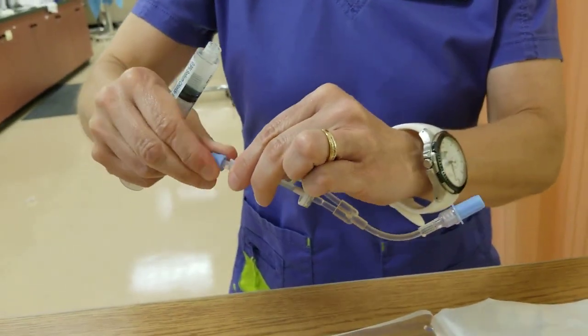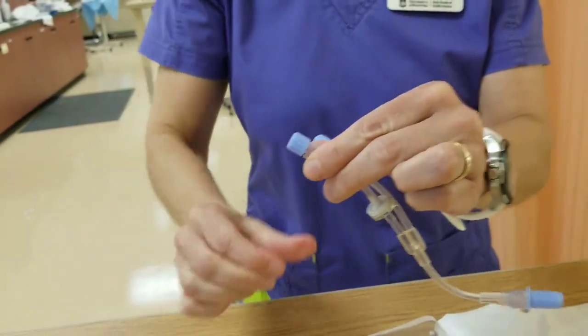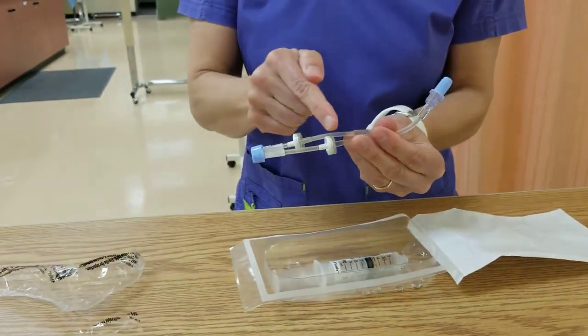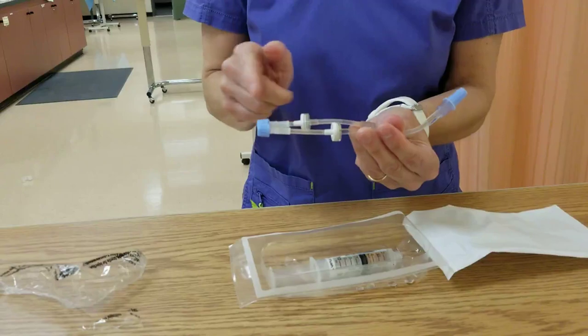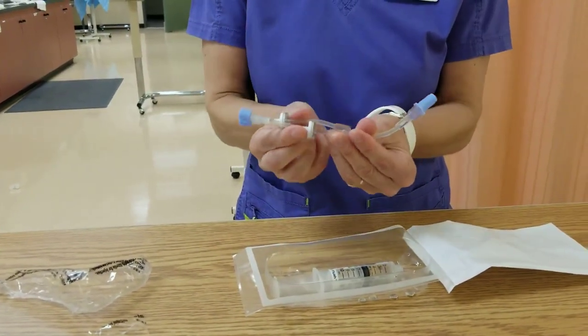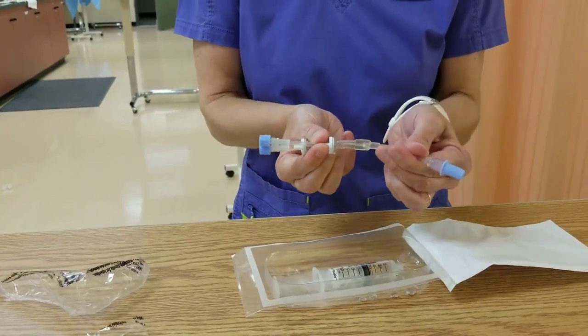So it's really quite simple. And the benefit of this tubing is that you can run a carrier and a medication and you don't have to worry about it going back up. Or potentially you can run two medications and this would go right into the IV.